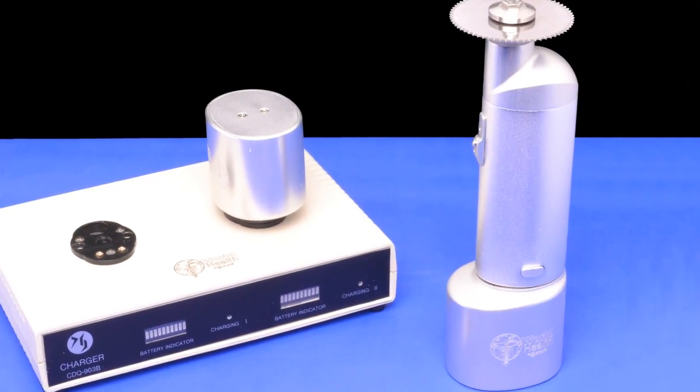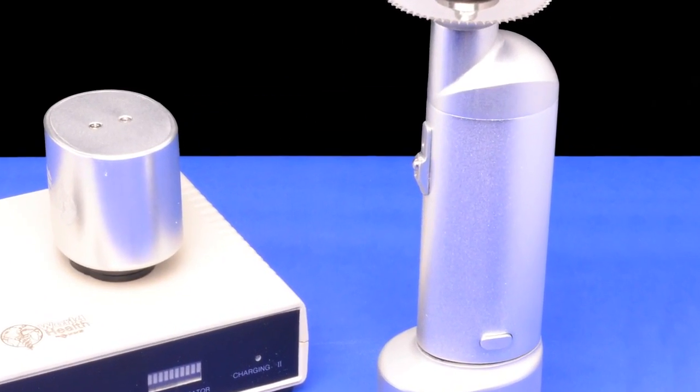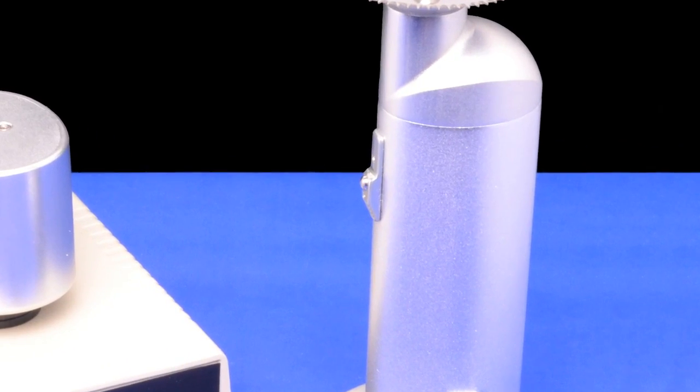When it is already securely attached, the button located on the handpiece is turned on.